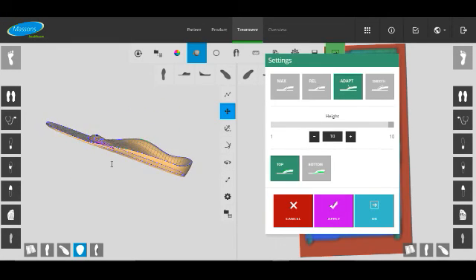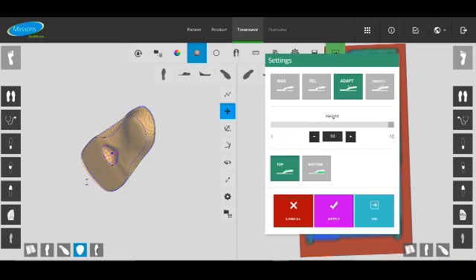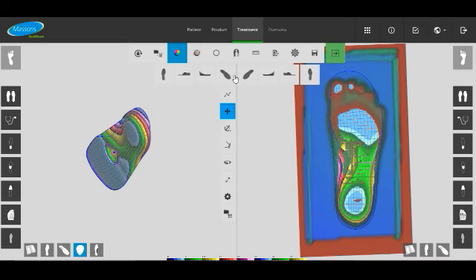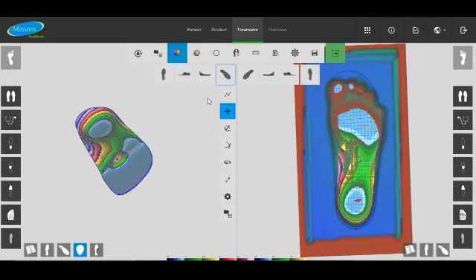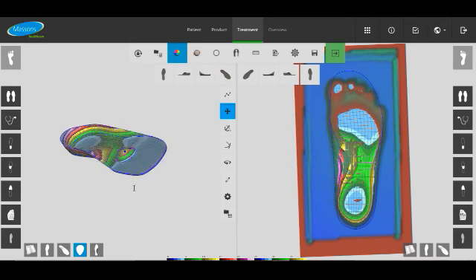We can also look at this through the stratified view. So it's colour coded layers letting you know in millimetres where the modifications and how the foot orthotic is shaped.